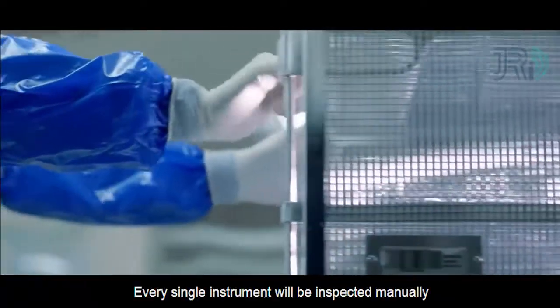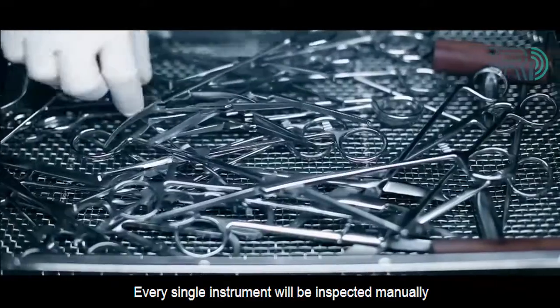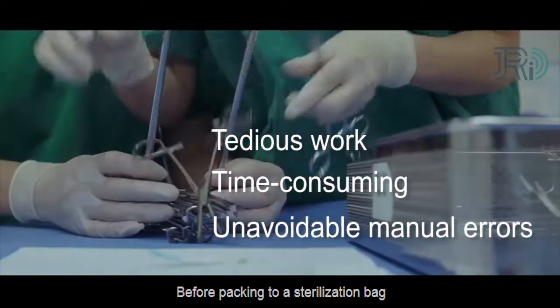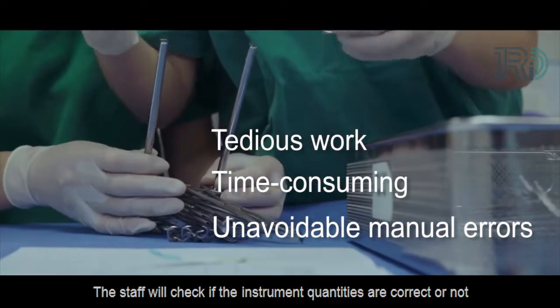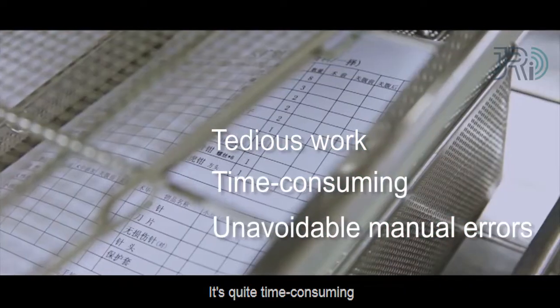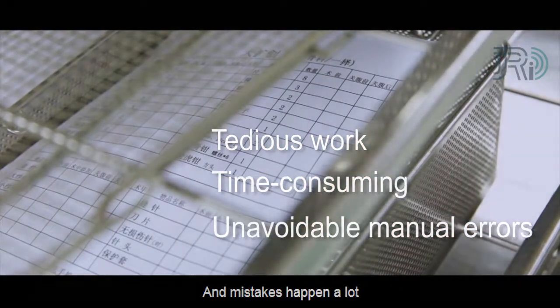Before sterilization, every single instrument will be inspected manually. Besides, before packing to a sterilization bag, the staff will check if the instrument's quantities are correct or not. It's quite time-consuming and mistakes happen a lot.